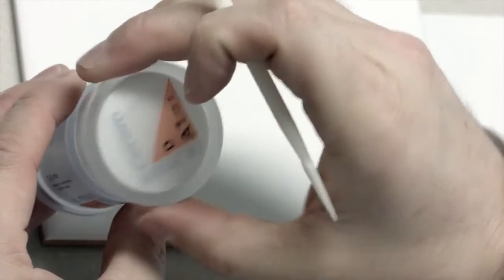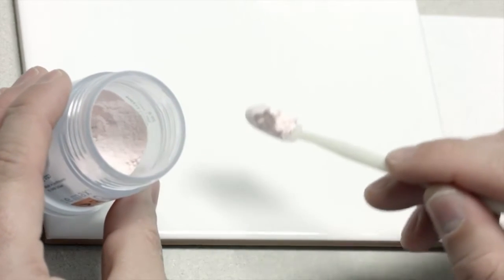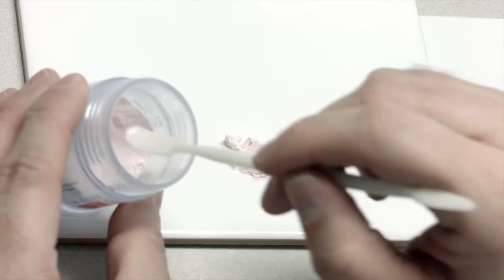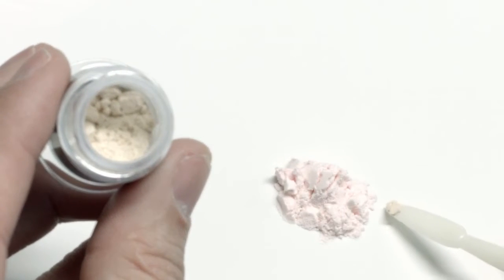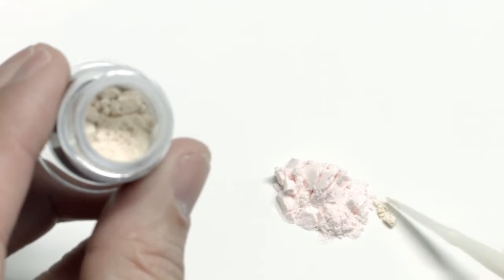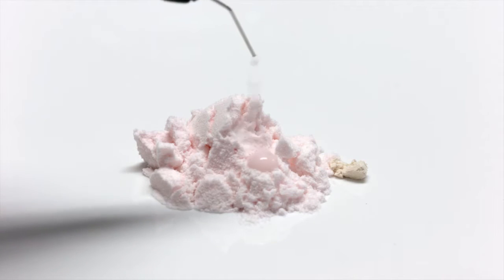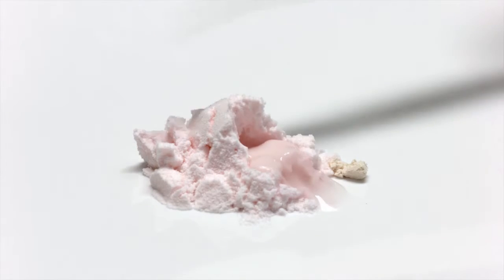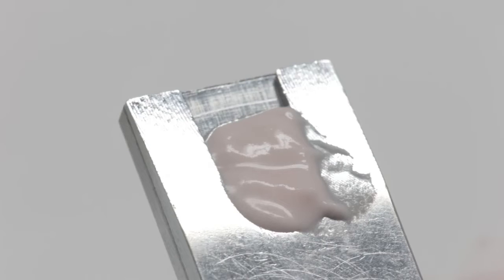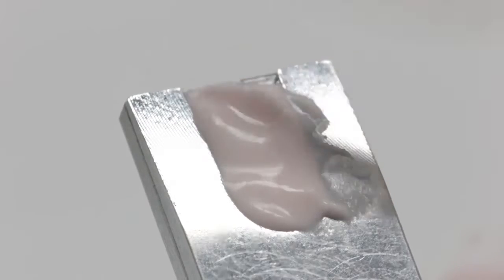It is possible to adjust the shade of a layering ceramic with the essence powder. The proportion of essence powder should not exceed 5% of the total amount of material. To mix the layering material, use the corresponding liquid. It is advisable to fire a test sample of the mixed ceramic before use.